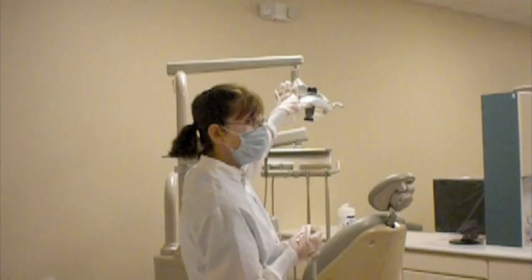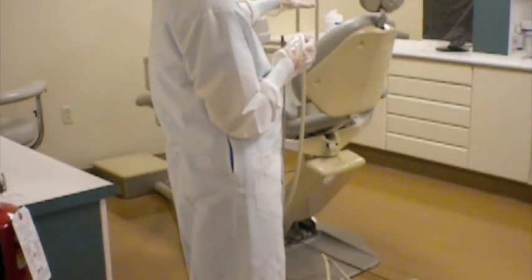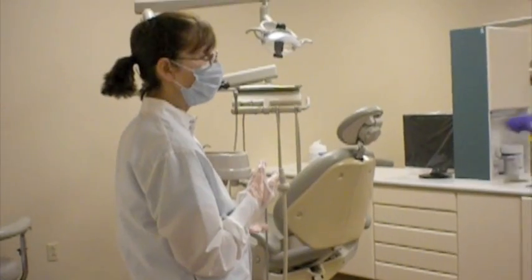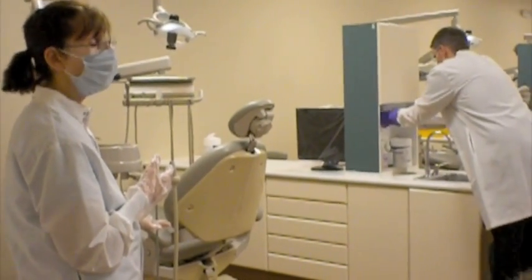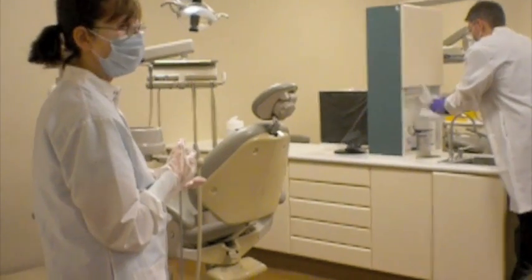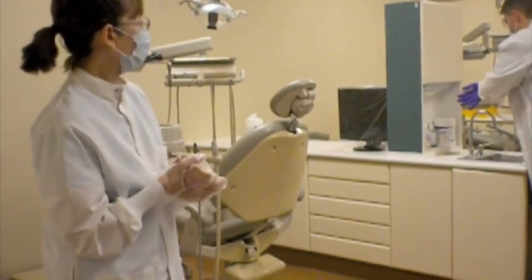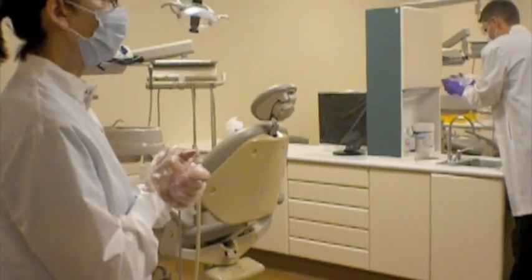So everything we do again is top to bottom, and we do all top surfaces first. We would wash and then continue with all of our base surfaces. That's done once for sanitization and then again for disinfection. So he'll begin at the top of the light, and he'll begin with the face of the light.